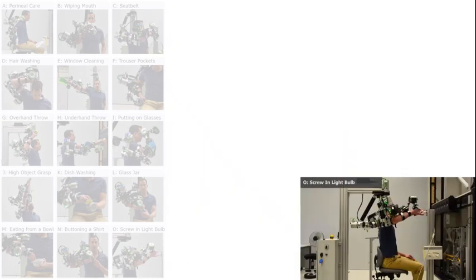But also very intricate movements like for example screwing in a light bulb, where it's vital to have a very precise rotation around a certain axis.